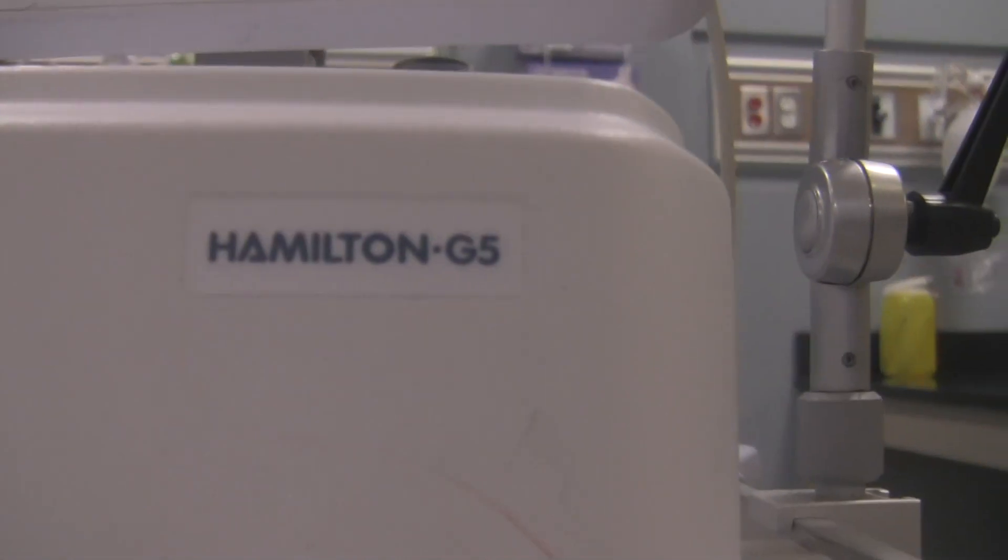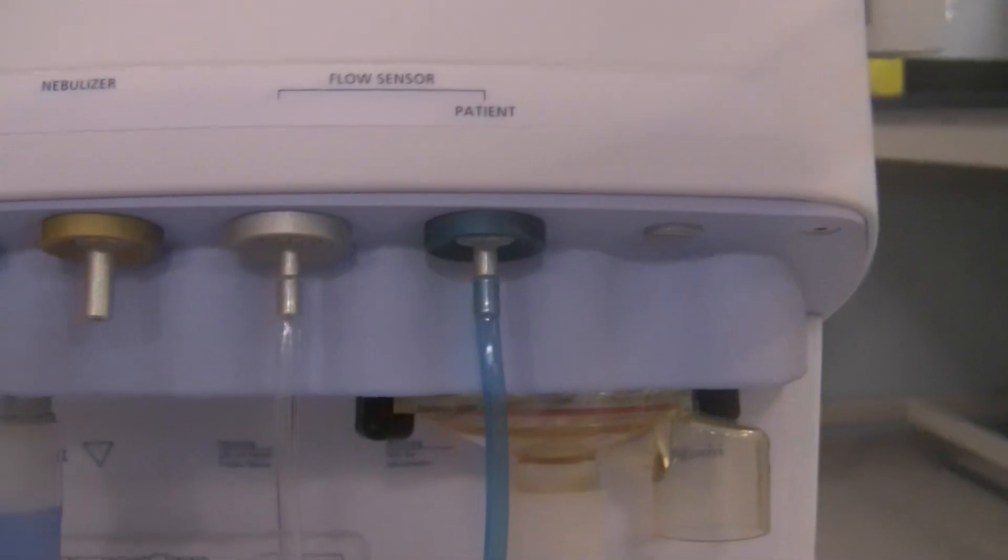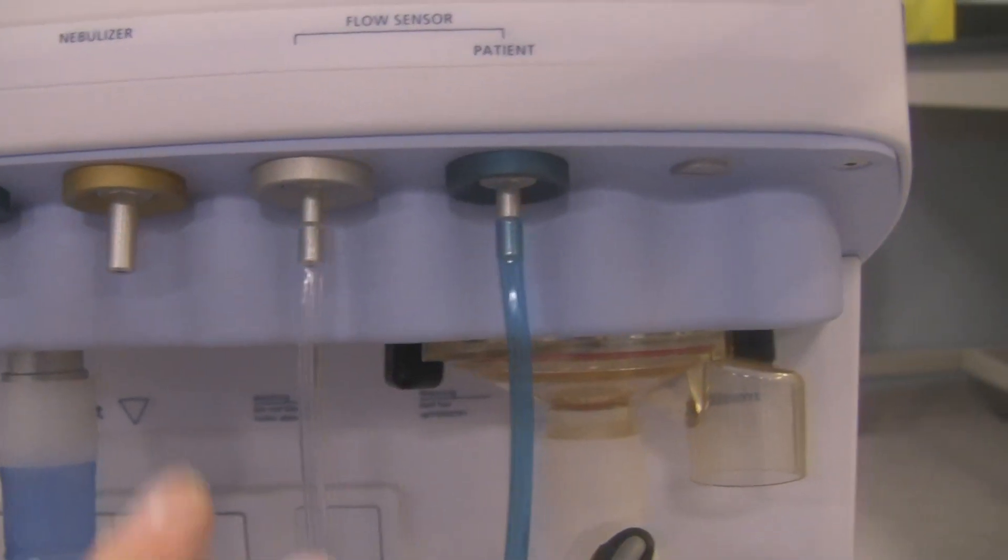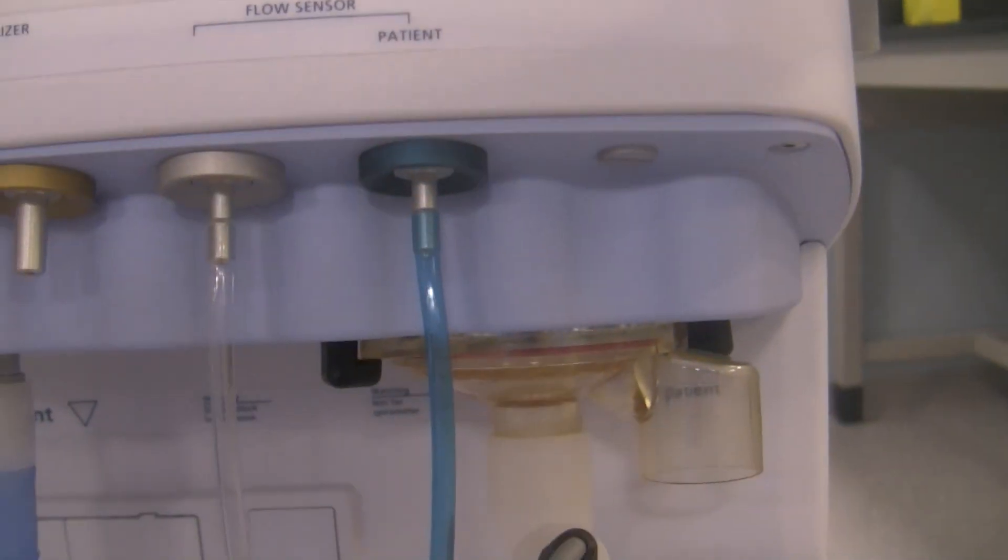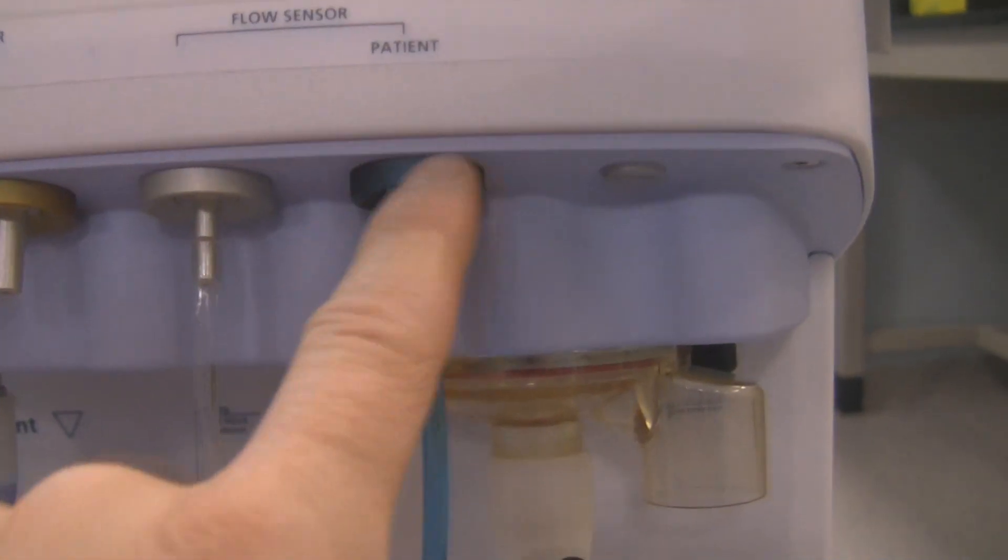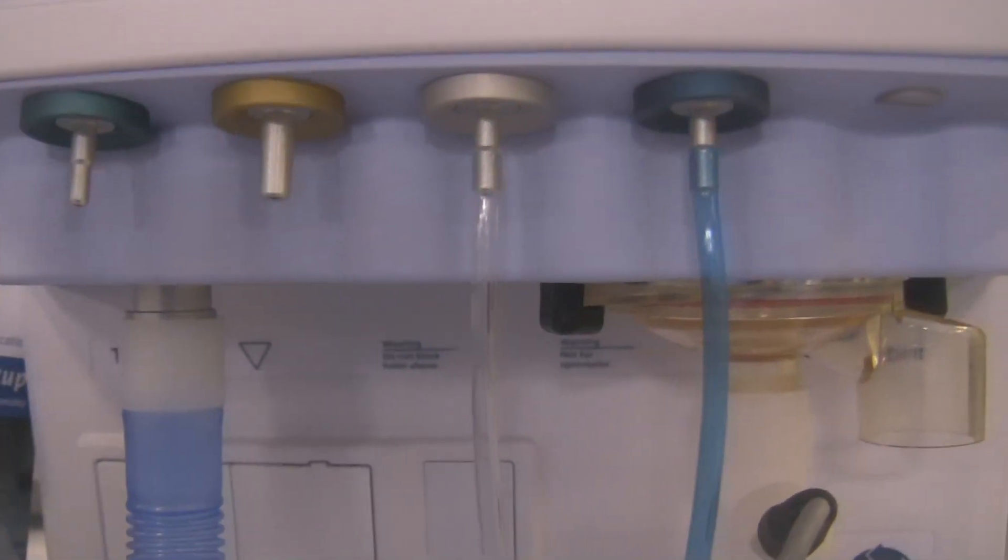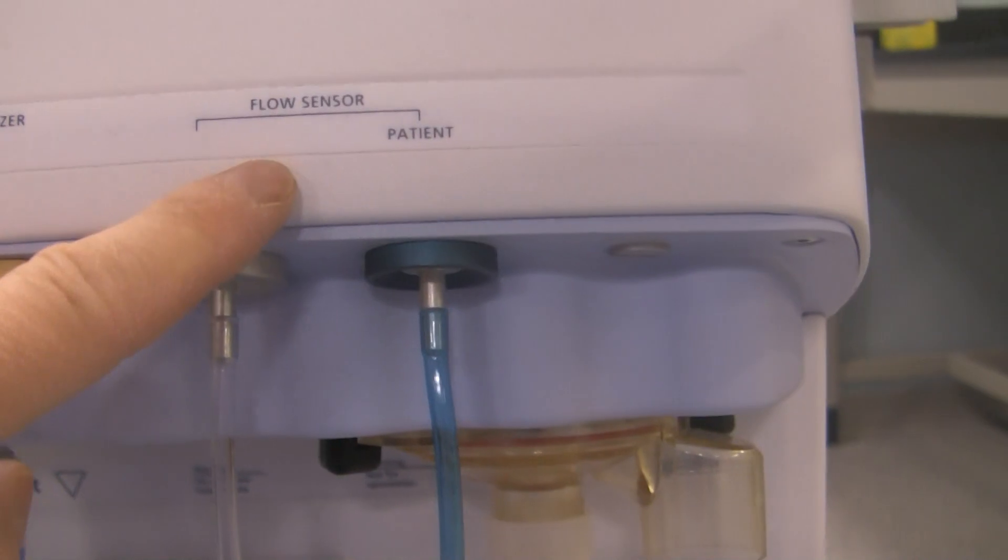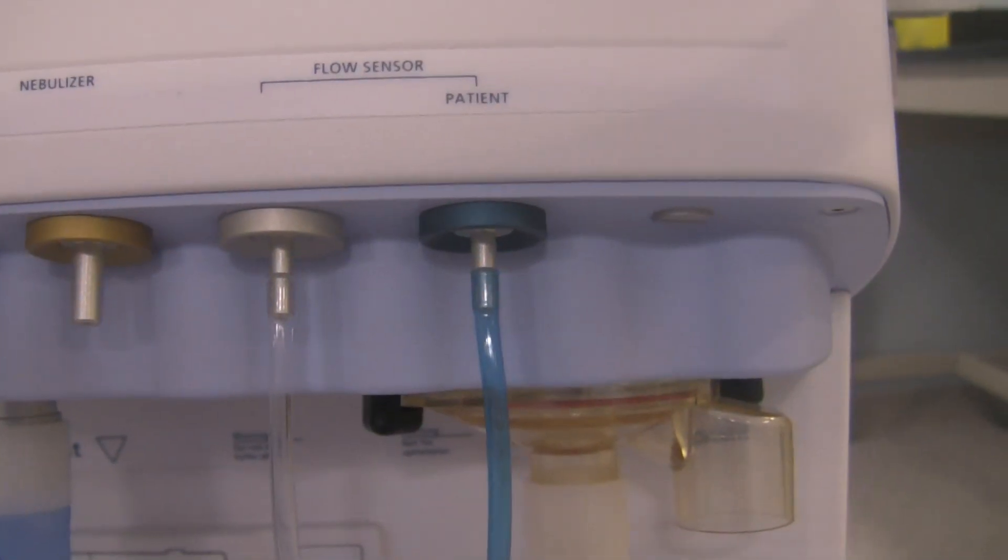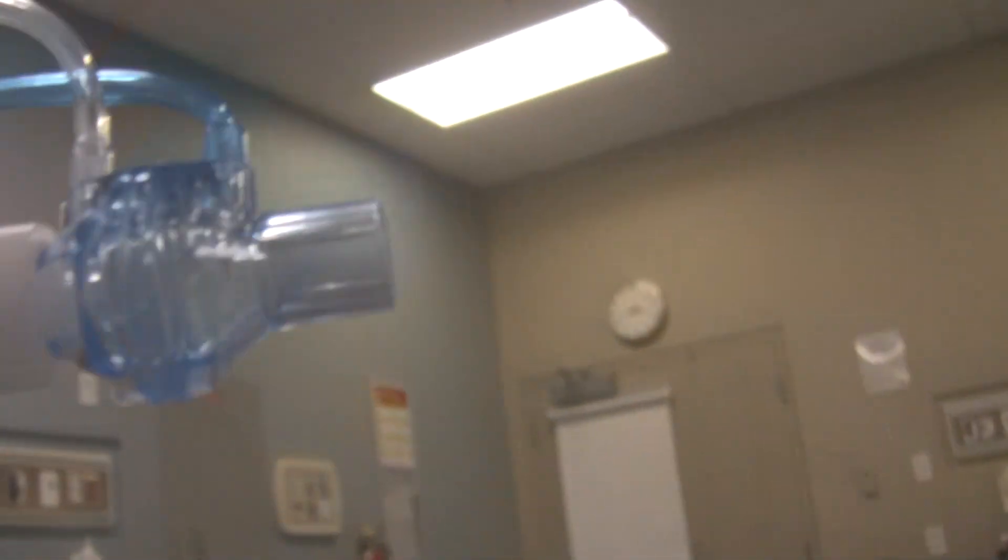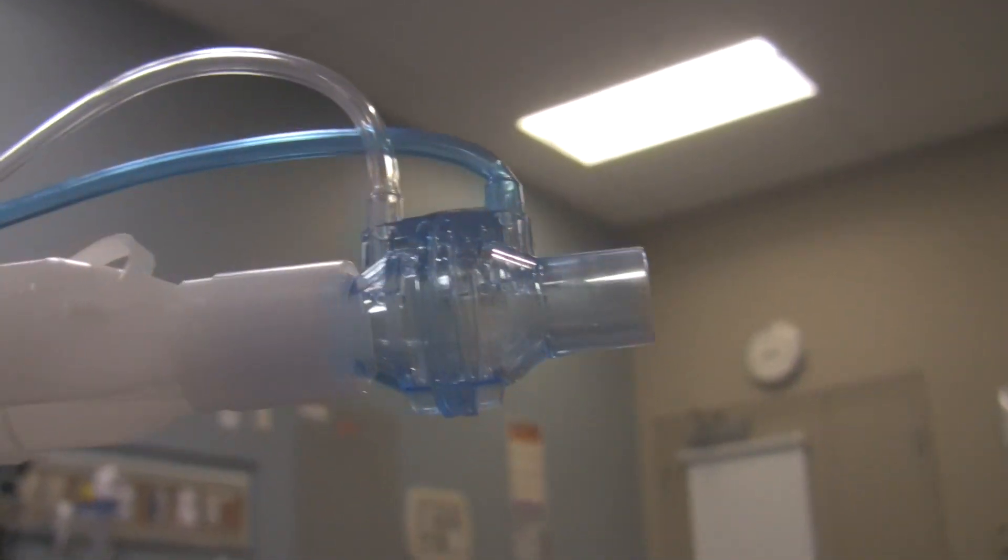If we go further down the ventilator, we've got these ports in the front. The important ports you're going to require for your ventilation are these two flow sensor ports. We've got the blue one right over here and the silver one. All these ports are color coded for a specific reason and that's to identify what you're supposed to use with them, especially with this flow sensor one.